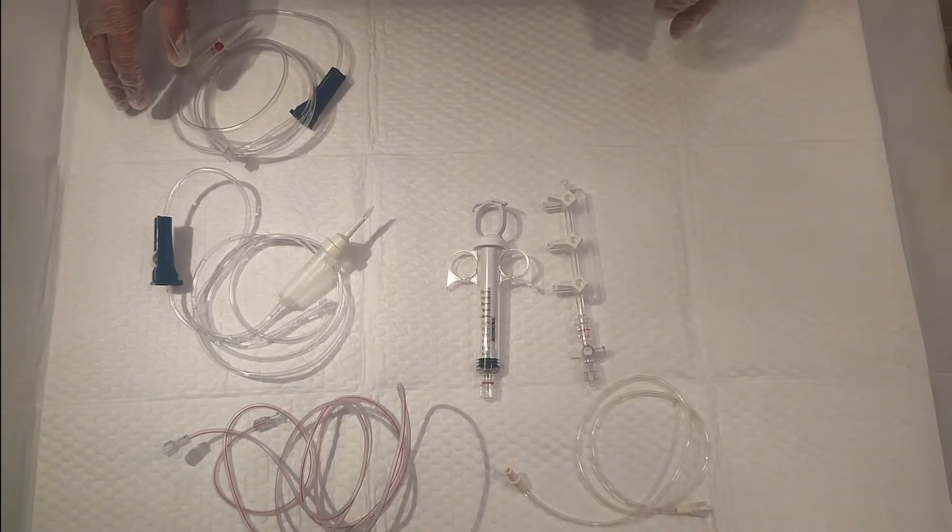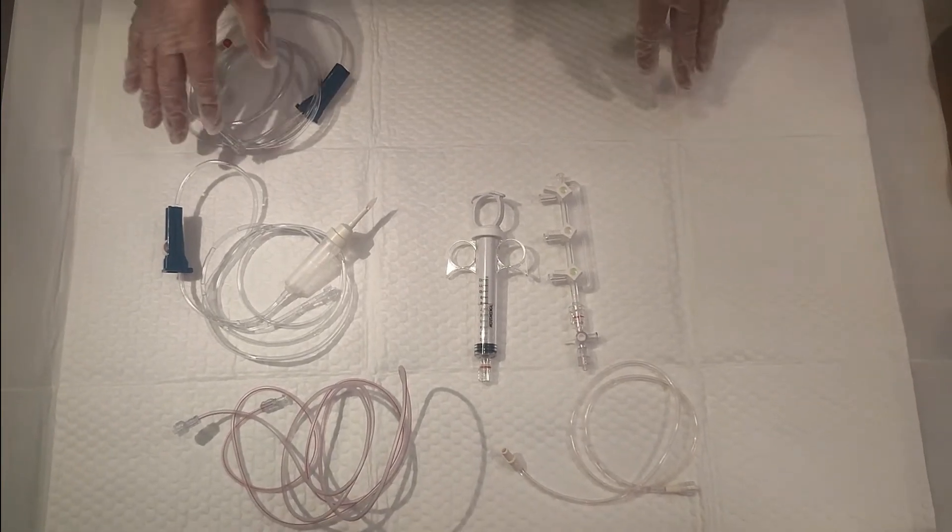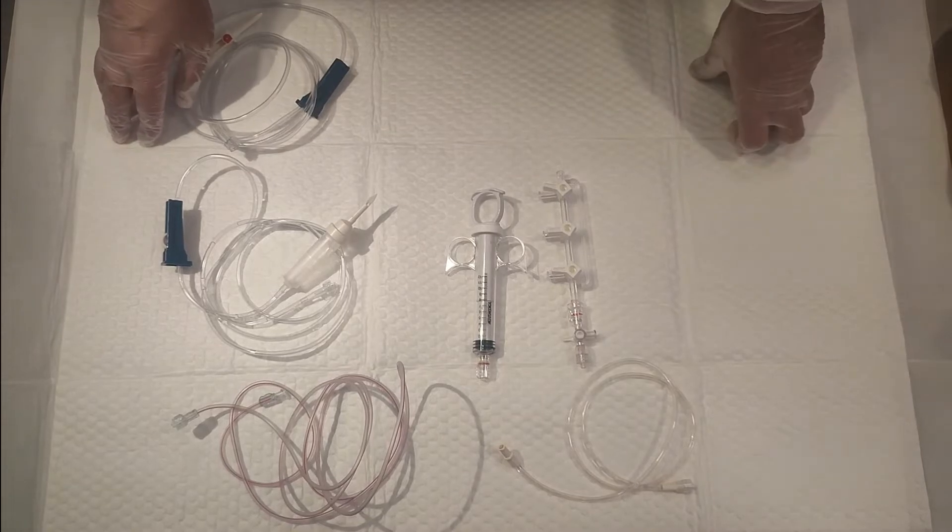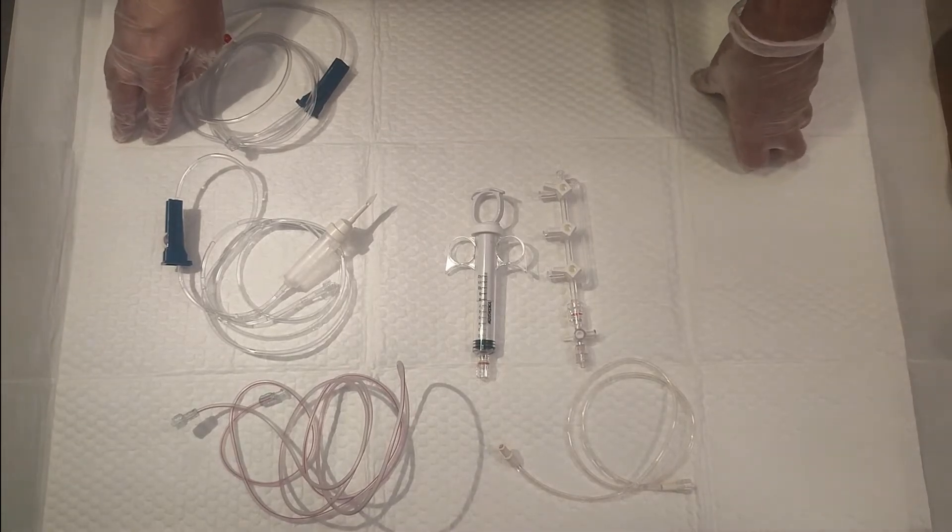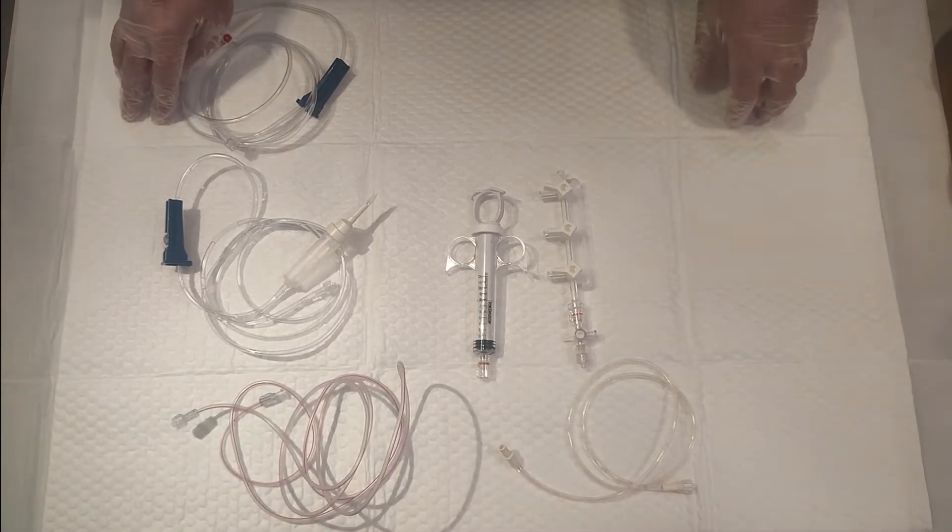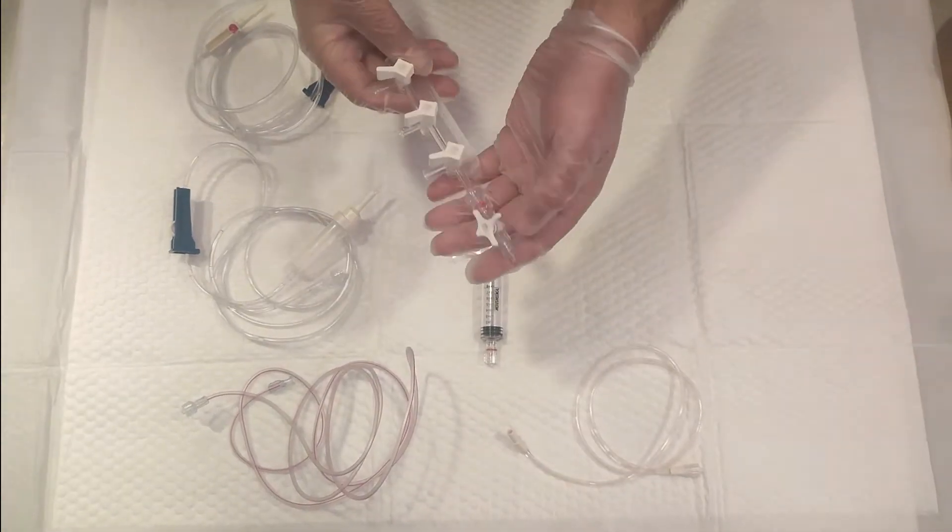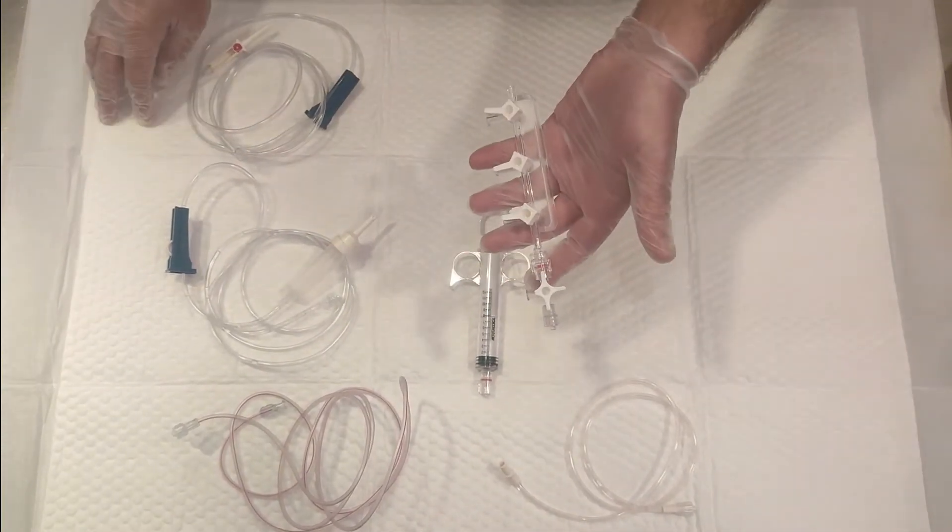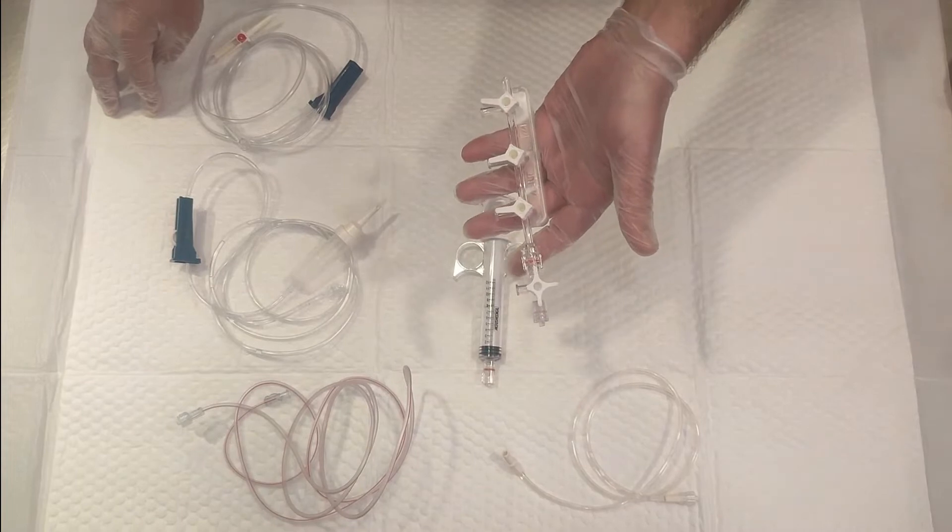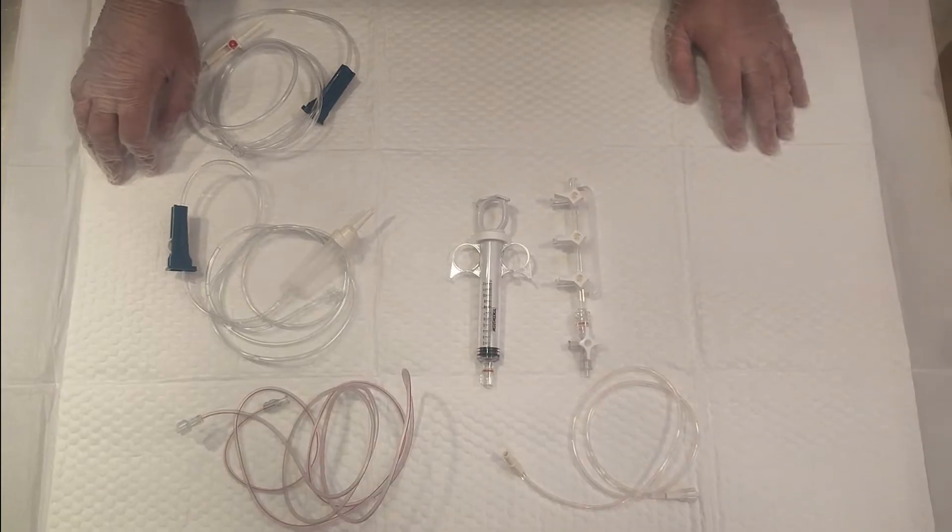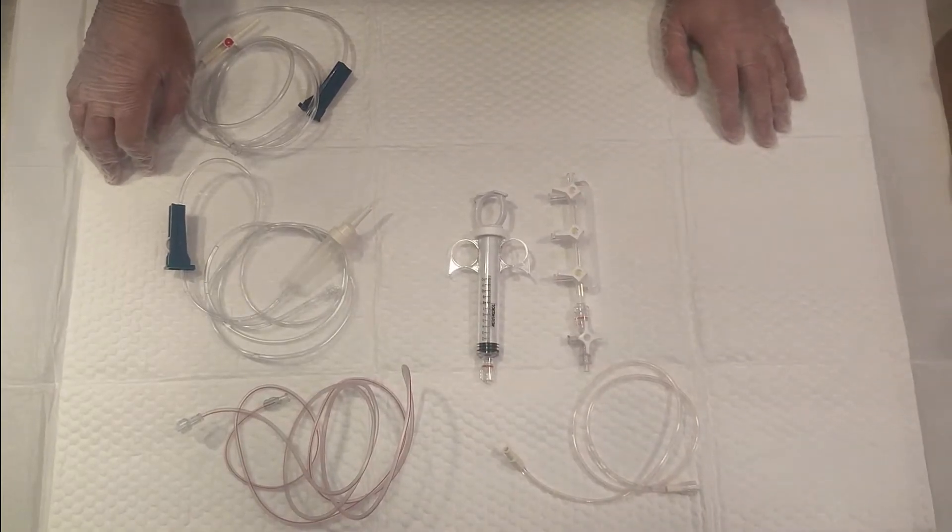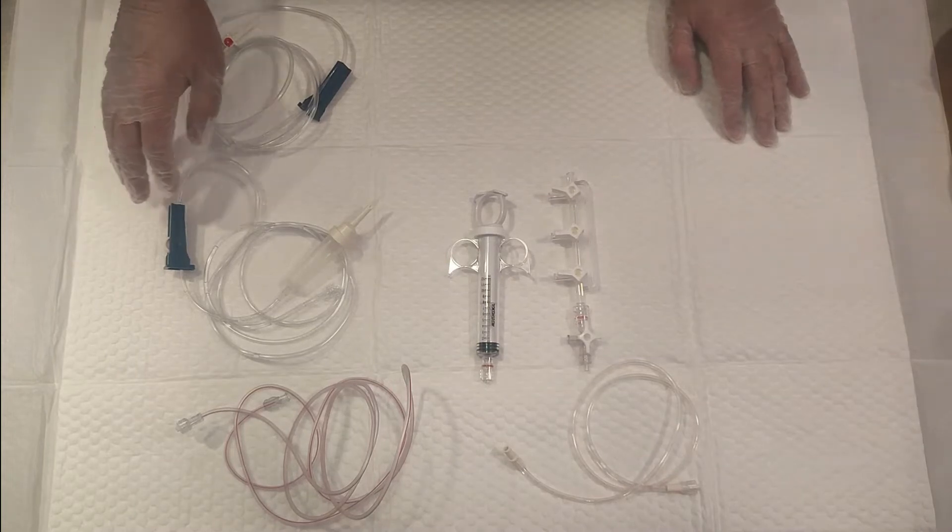Welcome back to my YouTube channel. In today's video, we'll talk about a manifold and its uses. This is a manifold, which comes in a cardiac cath pack or separately in sterile packaging. This video is for educational purposes only, so we're handling these items in a non-sterile way. Otherwise, this procedure is a sterile procedure.